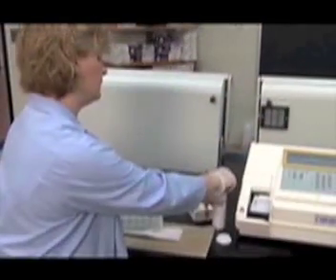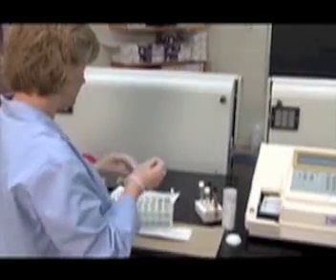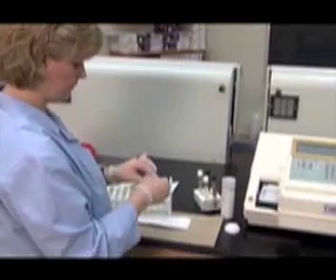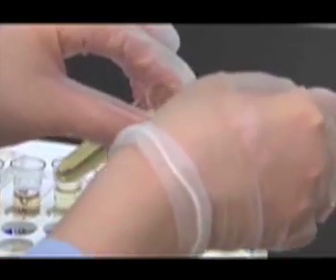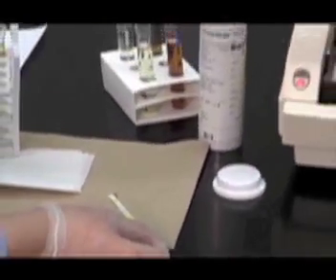Use the same technique as was used to dip the chem strips in the analysis of quality control material to test the patient samples. Dip a chem strip in the first sample, making sure to completely submerge it. Quickly remove the strip, wiping the edge along the rim of the tube. Blot the back of the strip on a paper towel and present the strip to the loading tray when the LED on the analyzer is green.